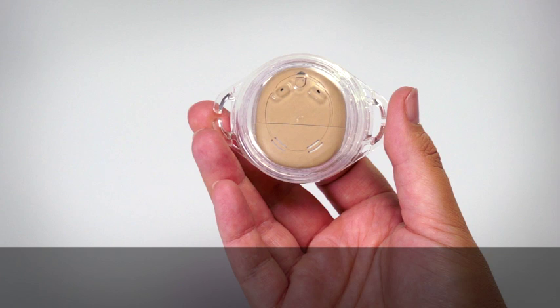It's worn on your implant with your Kanso sealed inside. If you use a safety line, remove it from your Kanso.